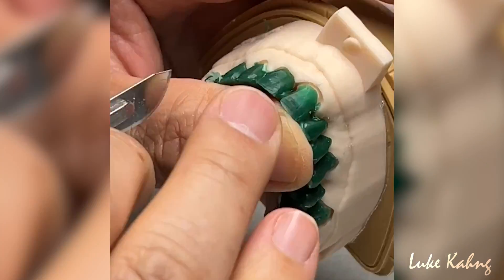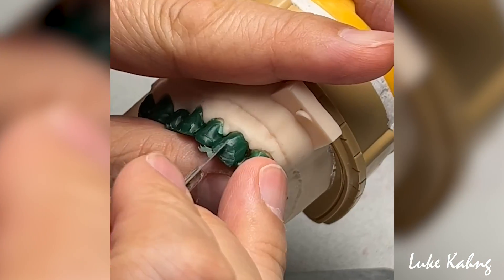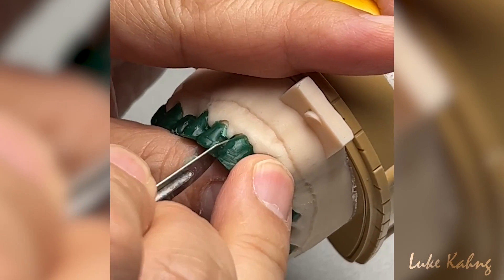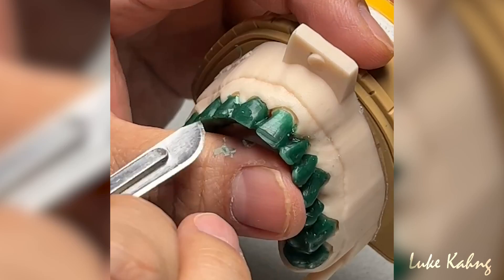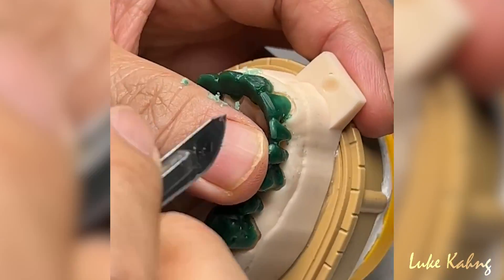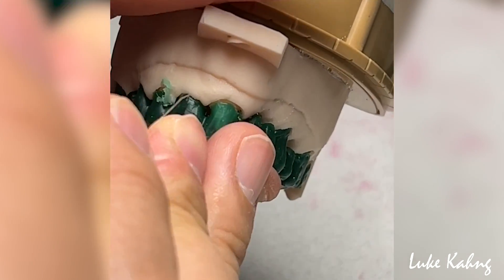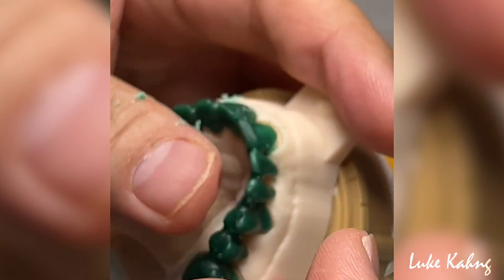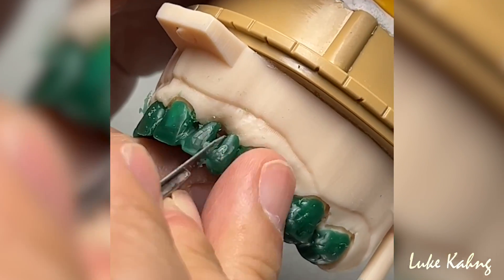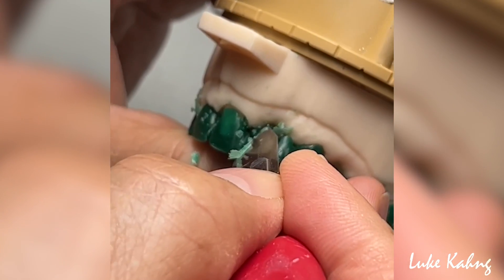Trying to make the same thing, but like I said this is too wide, so you have to cut it like this. Trying to make the same size and height. The lateral is already sticking out, so I need more grinding. Underneath is more open — that's okay.